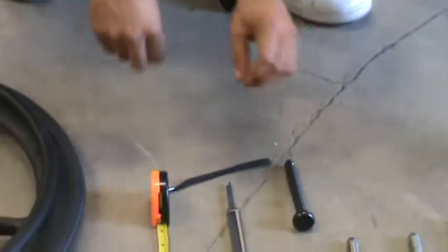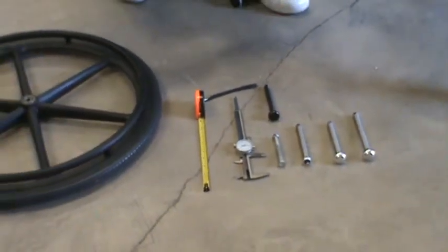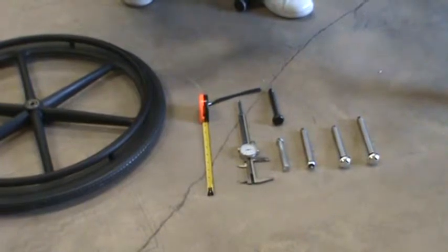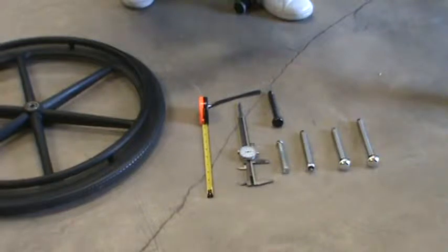All these come in variable lengths. Some come in different diameters too. Most quick release axles are half inch. The bolts come in seven sixteenths, half inch, and five eighths. This wheelchair uses a half inch, so we can use a quick release axle on it.